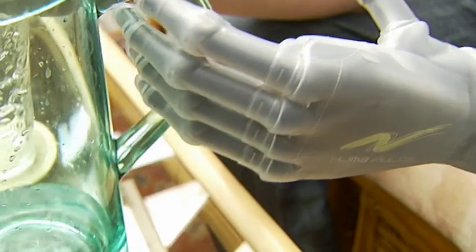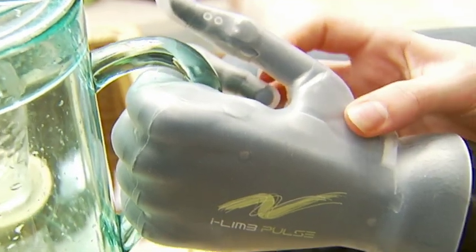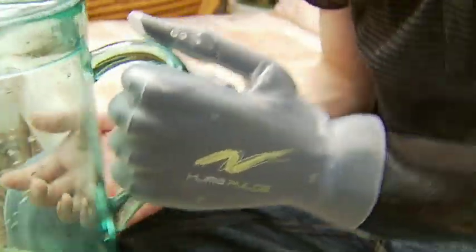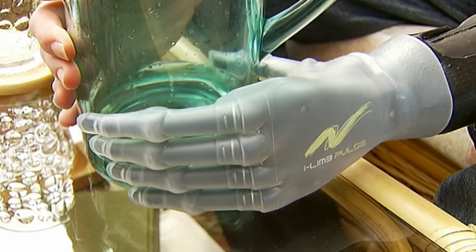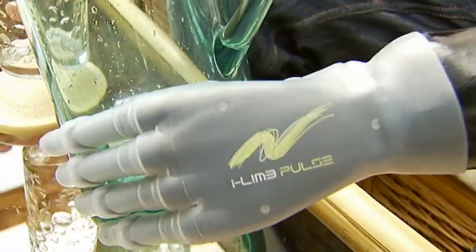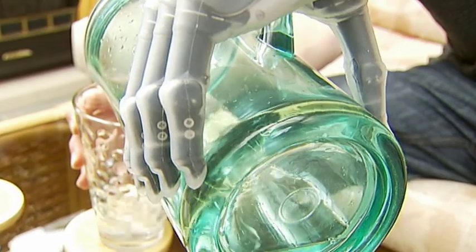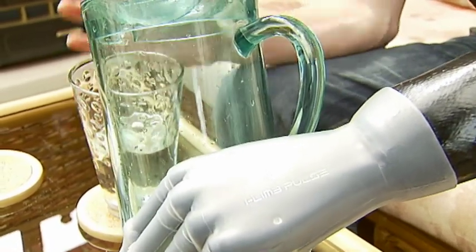I'm going to try using the handle — it's always good to start with what you would naturally do. Thumb position. I've got a good hold of it, but not enough degree of accuracy in angling it. So I'm going to try a very simple clamp grip here. That should be good. I'm just bouncing it. There we go — I'll just bounce it upright and try a little bit first.